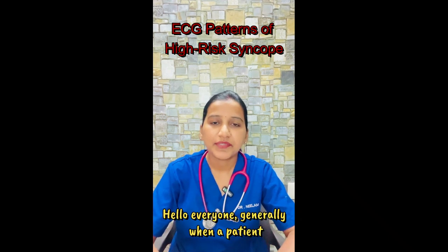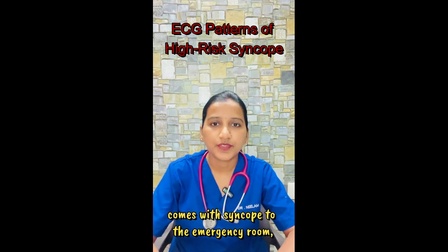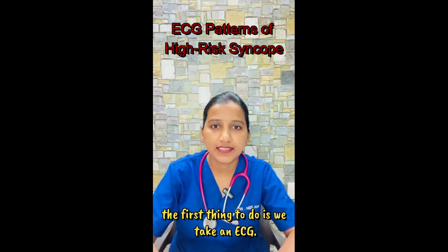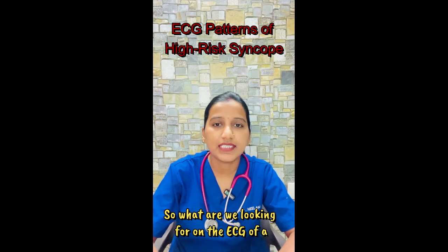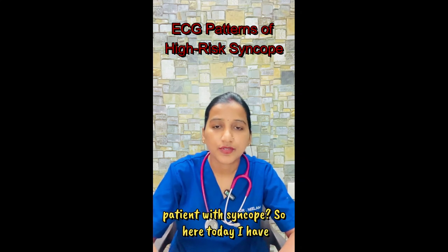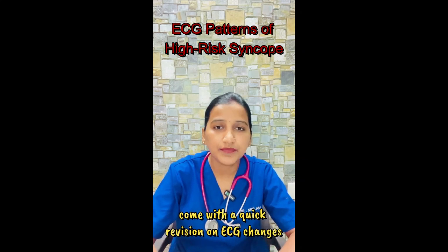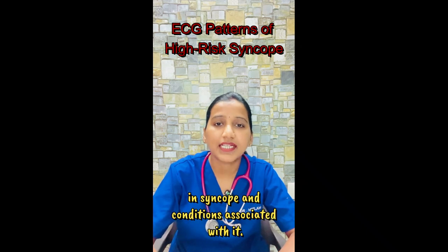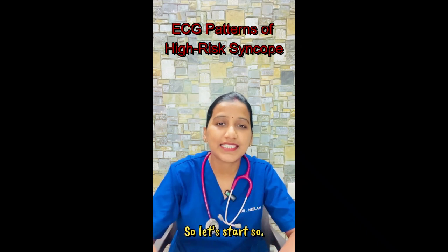Hello everyone. Generally when a patient comes with syncope to the emergency room, the first thing to do is we take an ECG. So what are we looking for on the ECG of a patient with syncope? Today I have come with a quick revision on ECG changes in syncope and conditions associated with it.